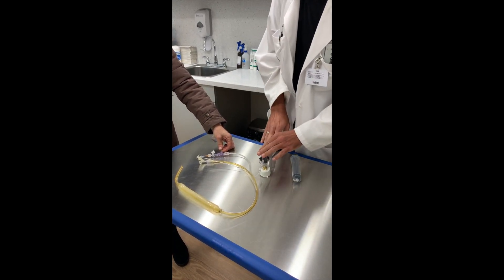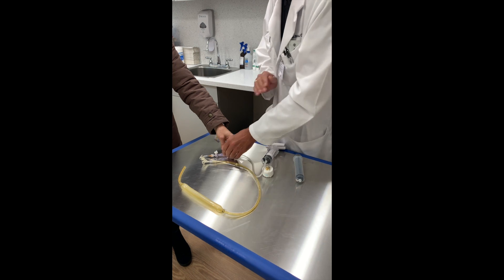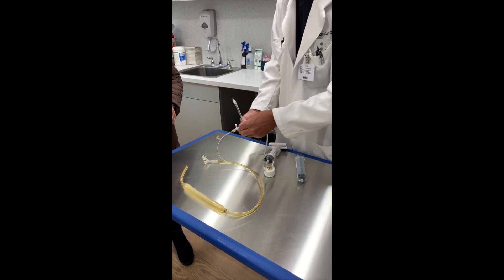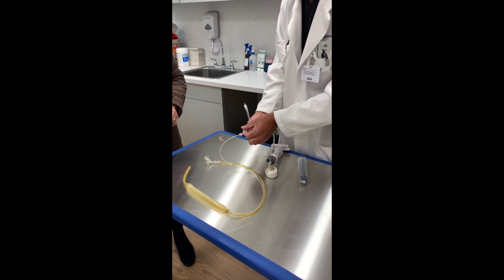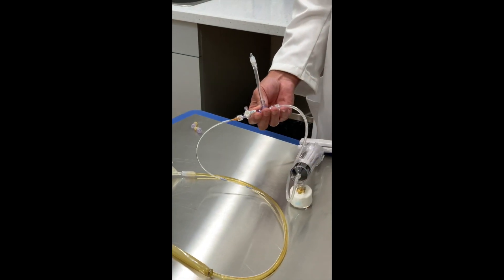Now, as soon as we get to four, we don't have to spend any time. As soon as we go to four, we go off to syringe so the air comes out of the balloon. Air is out of the balloon.